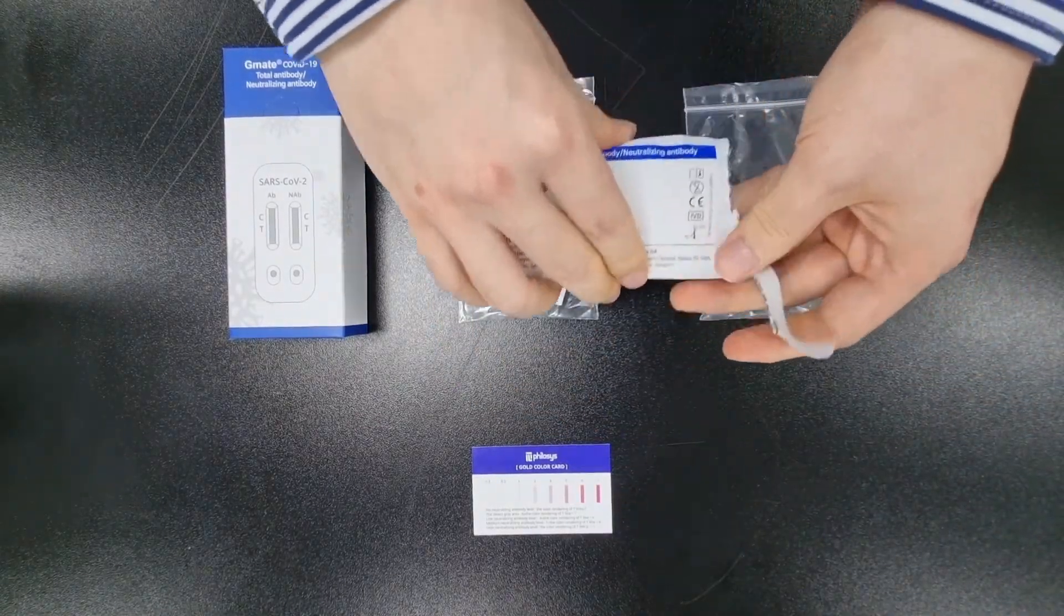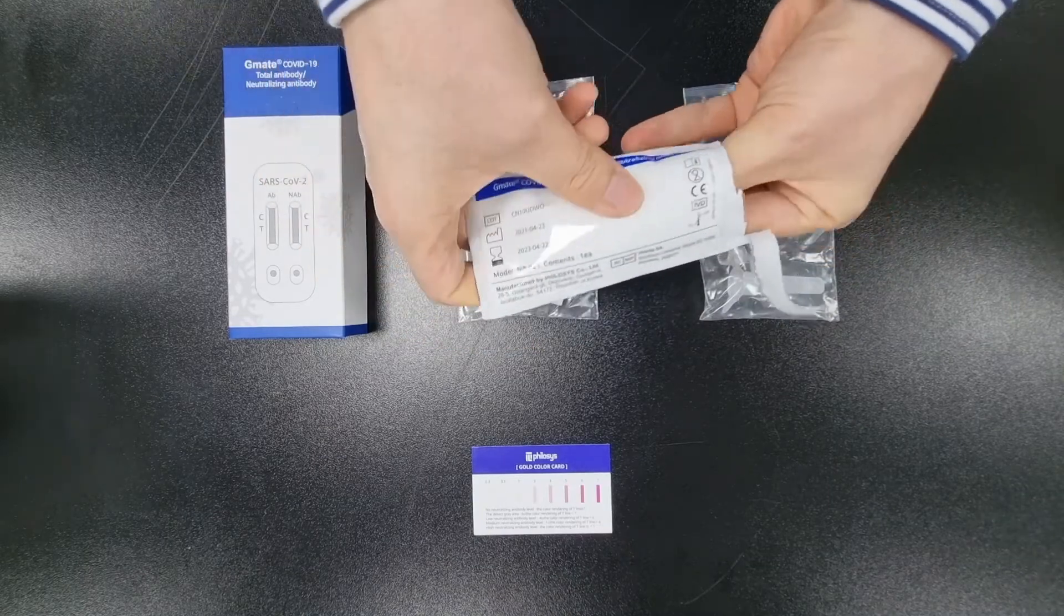Take out the test device from the inner packaging and place it on a flat and clean surface.